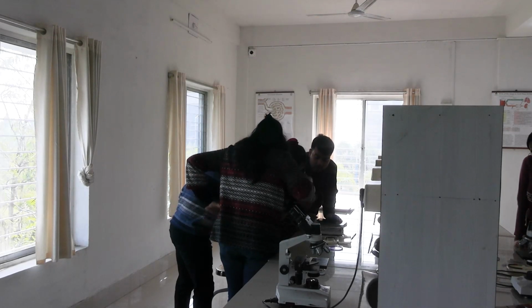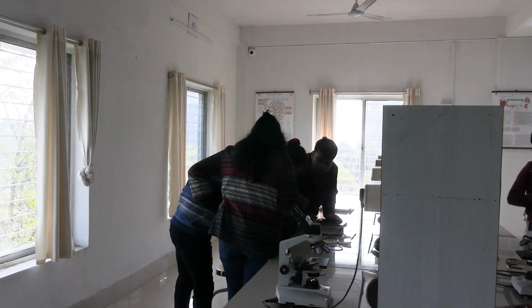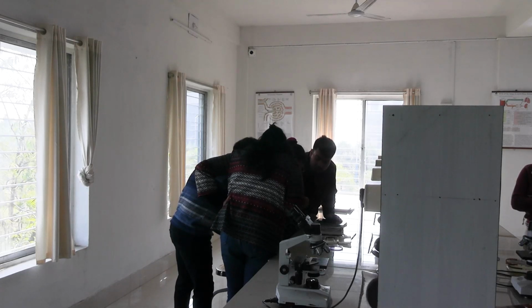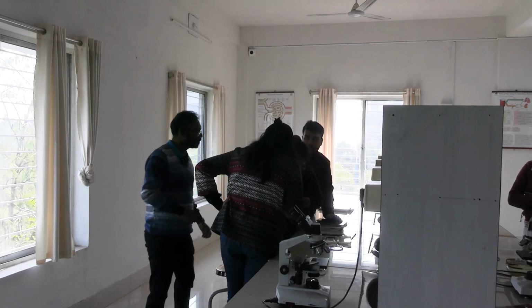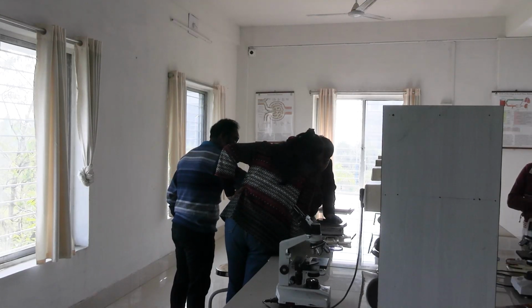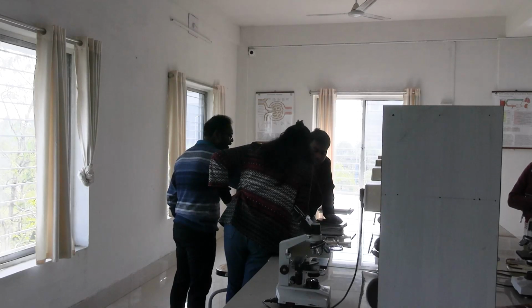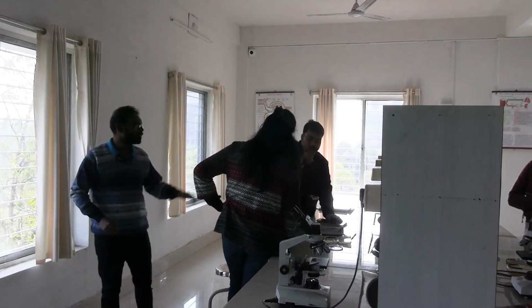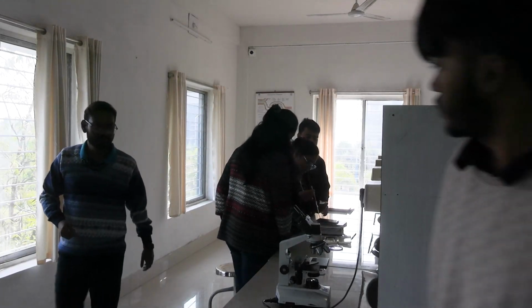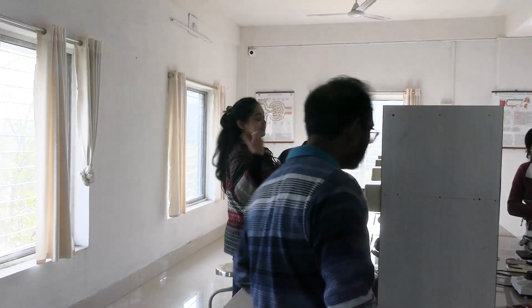এই যে এখানে রাখলে, ধরো তোমার এই চেম্বারে তুমি দেখছো, এরকম ভাবে রাখবে. জাস্ট এই সাইডটায় রাখবে, এই যে ধরো এইভাবে রাখছো, একটু এখানে যে গ্যাপ আছে, এই তো এইখানে রাখলে অটোমেটিক তলায় ঢুকে যাবে. এইখানটা রাখলে অটোমেটিক ক্যাপিলারি ফাংশন, যে চেম্বারে তুমি চেক করবে প্রেফারেবলি সেই চেম্বারটায় দেবে. এই চেম্বারটায় দেখলে এরকম ভাবে দিয়ে এই সাইড দিয়ে এখানে রেখে দিলে ঢুকে যাবে, উল্টো দিক দিয়ে করলেও হবে, ঢুকে যাবে. ওটা আগে তোমরা মিক্স করো, আমরা প্রত্যেক জায়গায় এসে মাইক্রোস্কোপে বসানোর আগে দেখিয়ে দেবো.